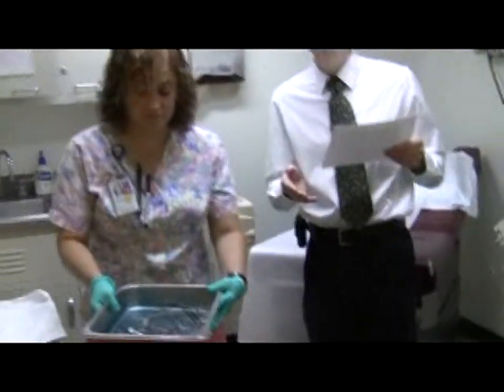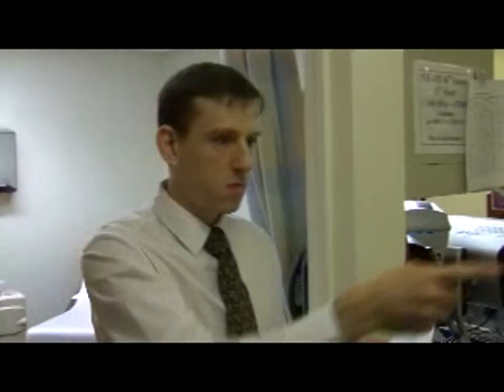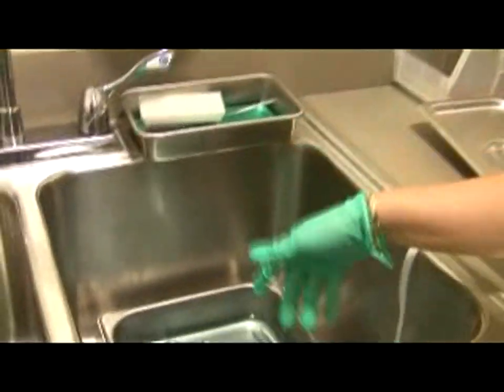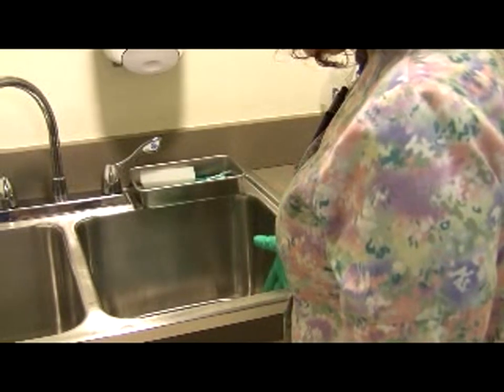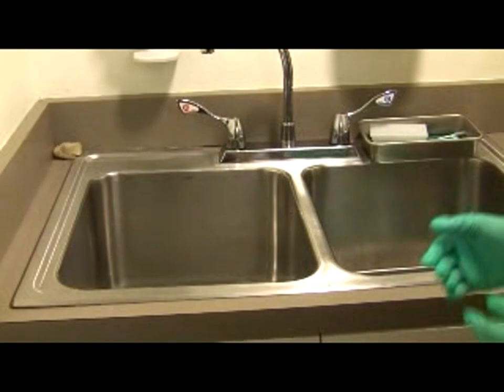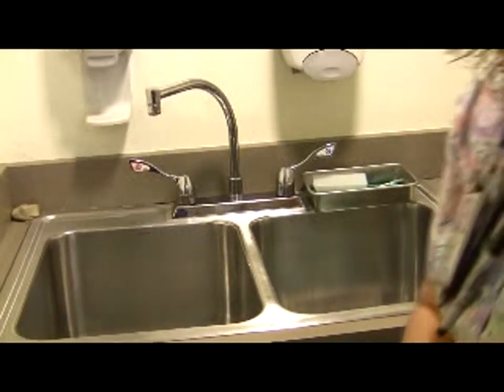Carmen would walk around all the different rooms and grab all the instruments, then use a larger metal bin into which you dump the instruments. Go to the soiled utilities room. There are two-sided sinks. The right side is soiled because it's closest to the cleaning area. The left side is clean.